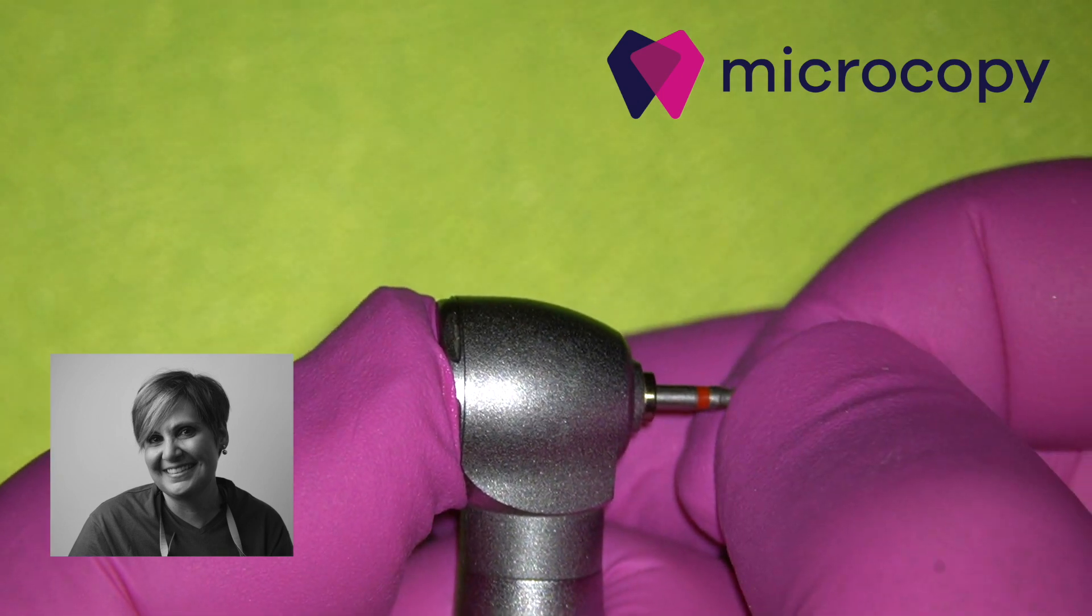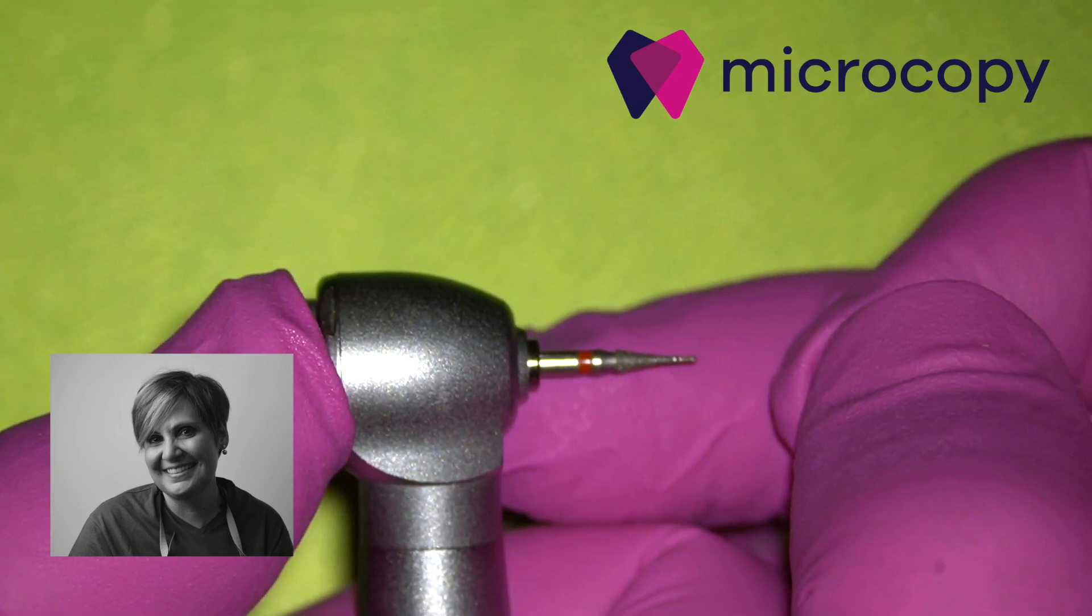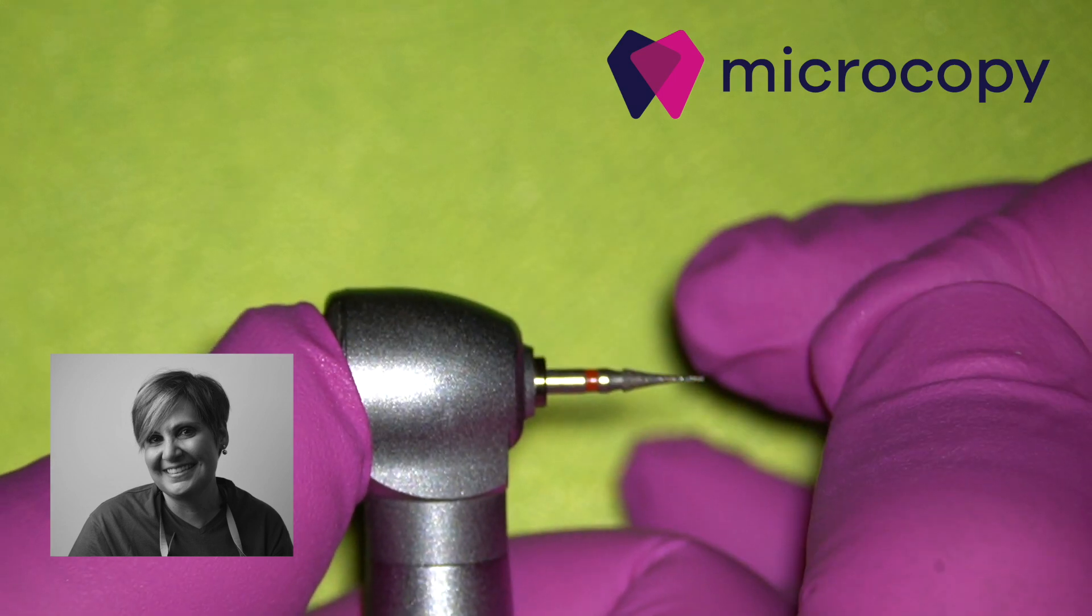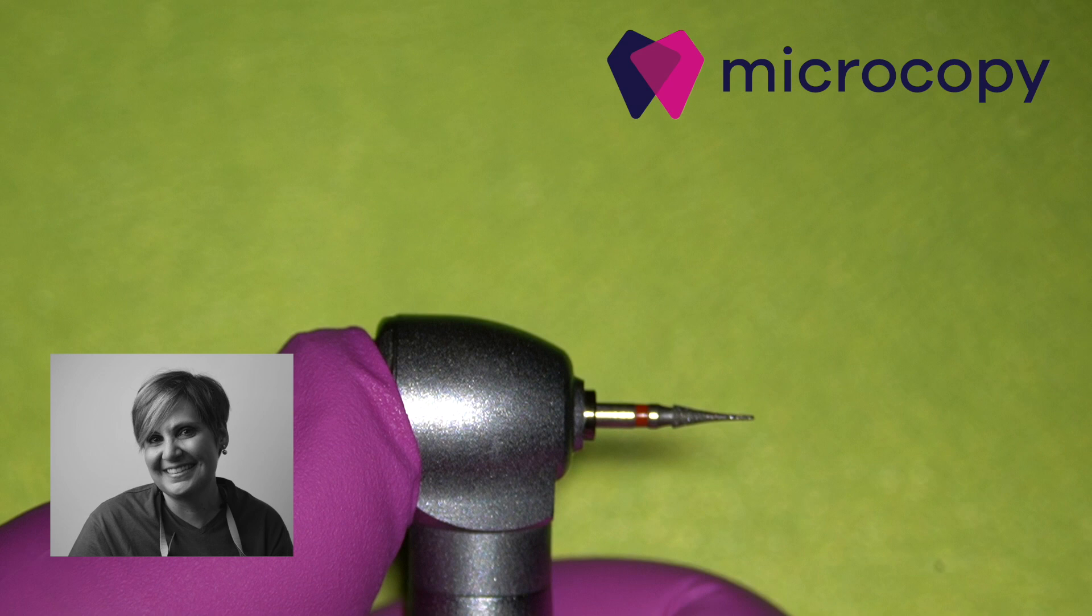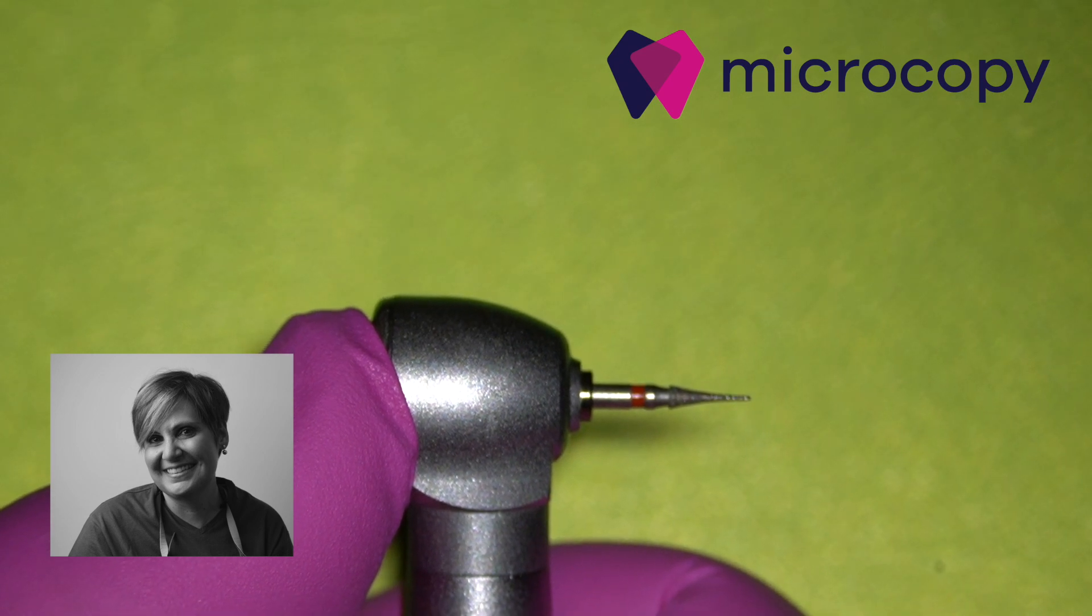On the other hand, when I use a microcopy bur which is especially designed to fit exactly in the shank of the handpiece, you see that I try to detach it and nothing happens.